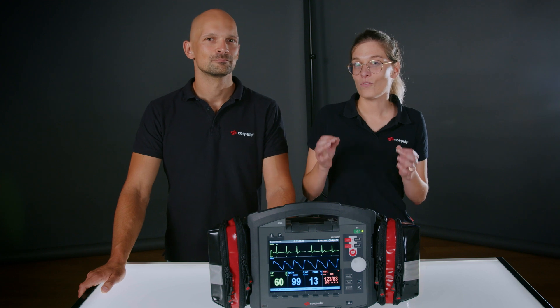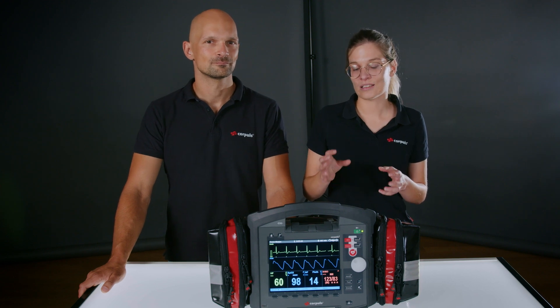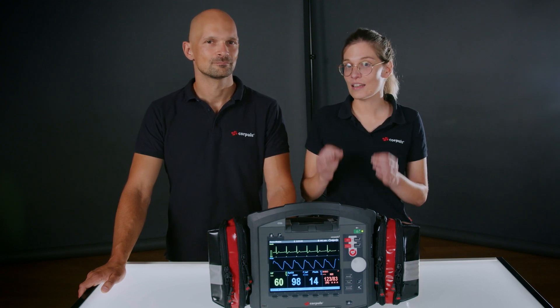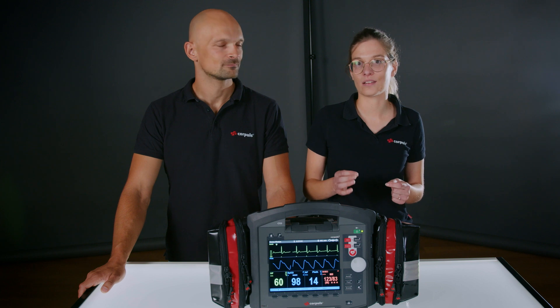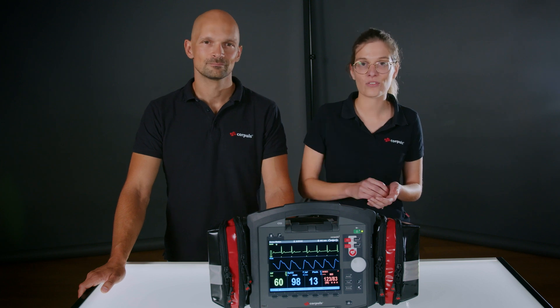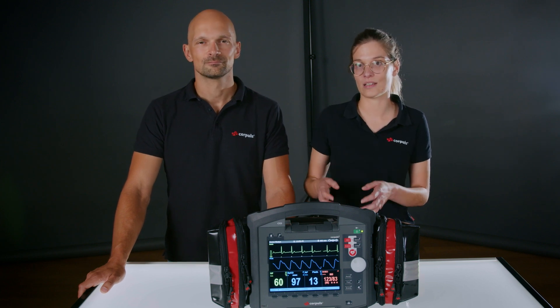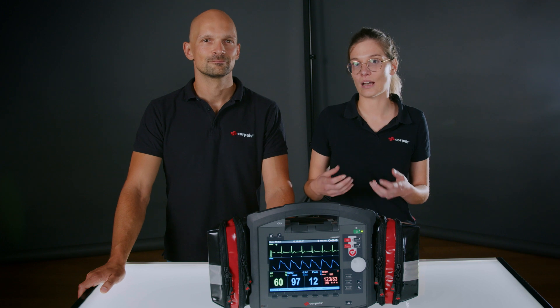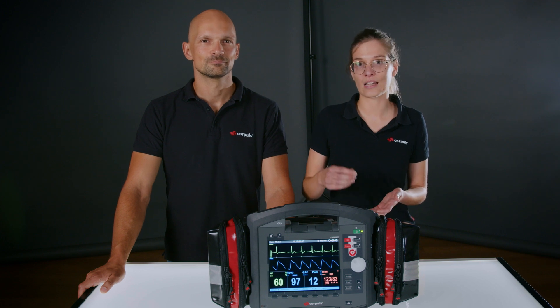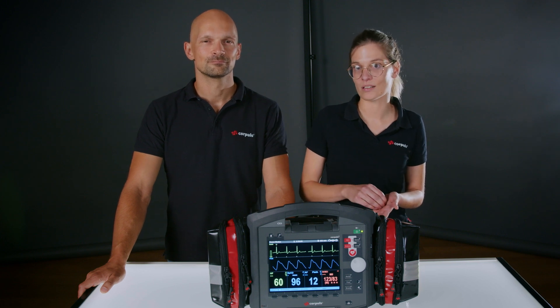It is important to mention that this does not work as apnea monitoring for patients. It is crucial to always have an eye on the patient yourselves. We also recommend to count the respiration rate yourself first.